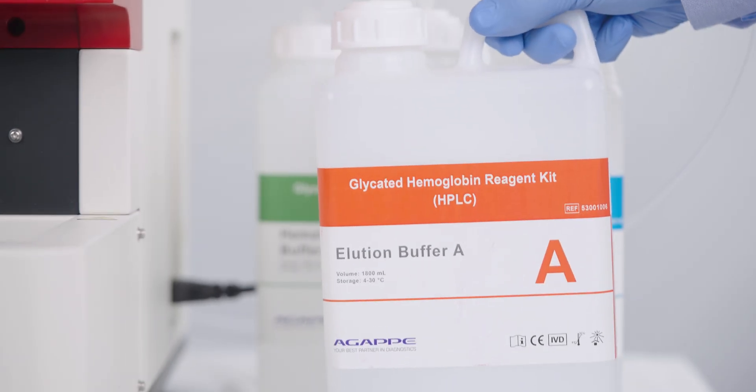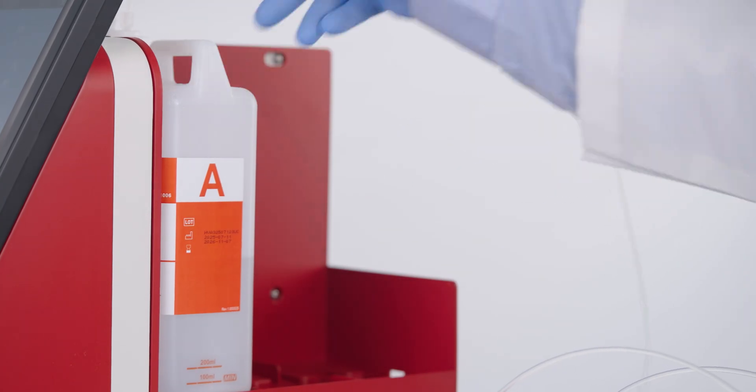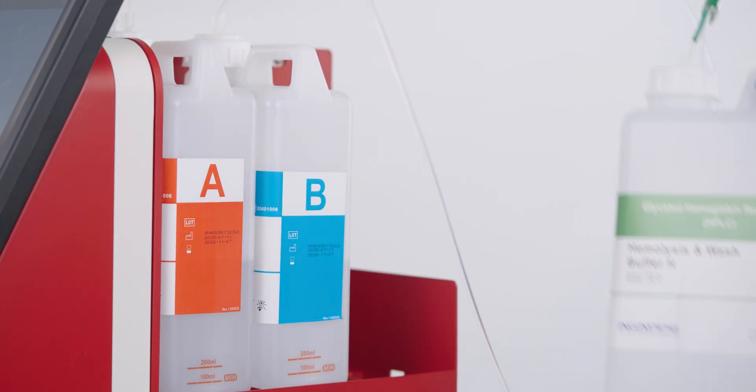The Maestro's intelligent management feature automatically identifies consumables and continuously monitors remaining reagent volumes, ensuring an uninterrupted workflow.